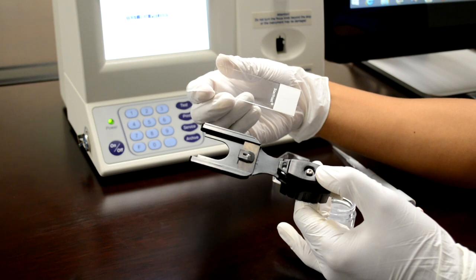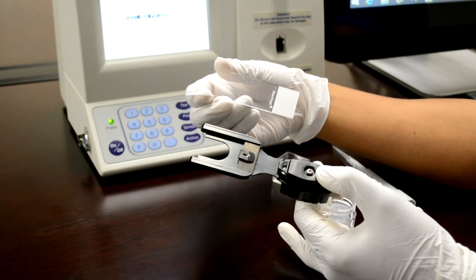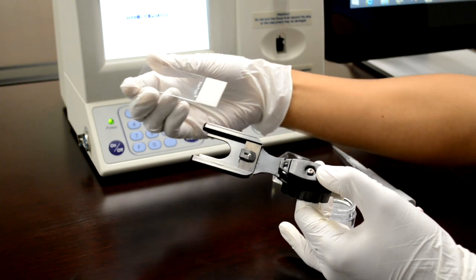Another way to utilize the SQAV visualization system is with a standard 1 inch by 3 inch lab slide and a wet preparation. In order to do so, load a slide into the included slide adapter.